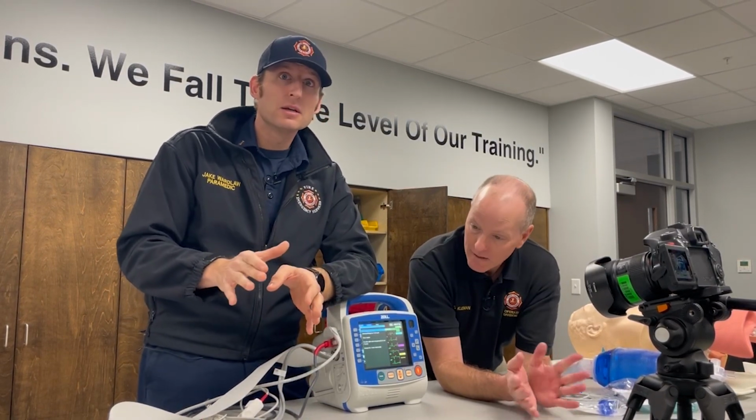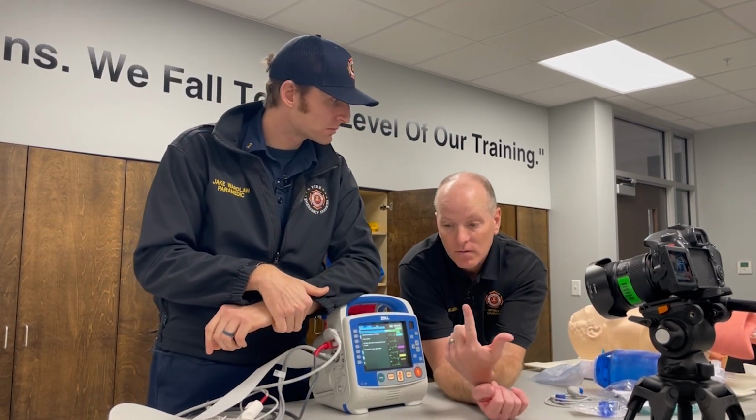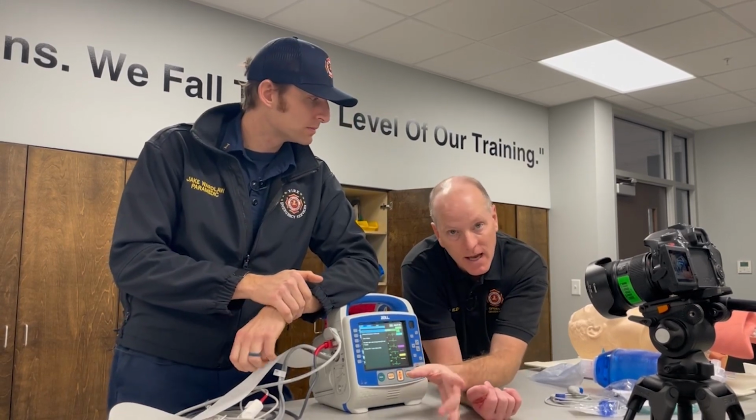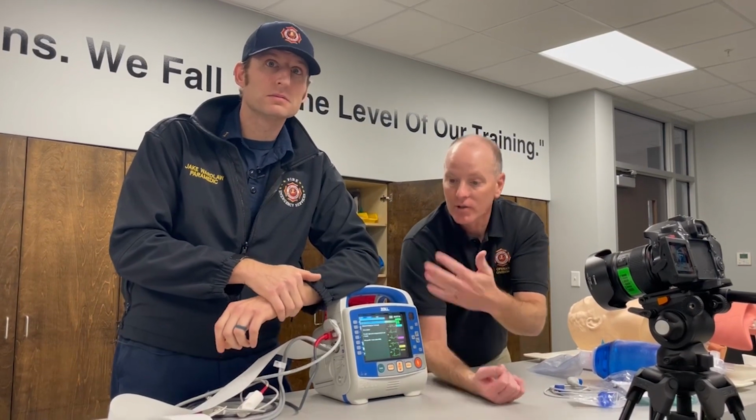That's fine. And that's what we should be doing. Correct. We're looking at you guys putting on a 12 lead. Immediately, if the criteria says STEMI, transmit that, get the cath lab team rolling, and then treat your patients. Correct. Don't forget aspirin, your nitro if need be.